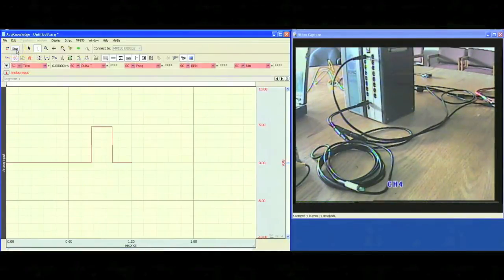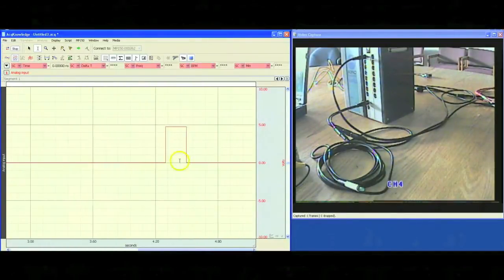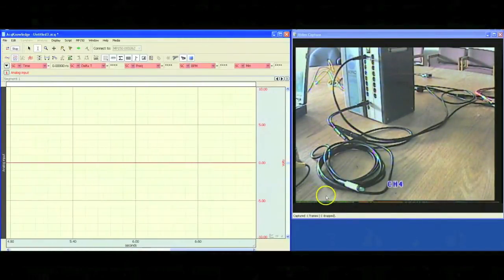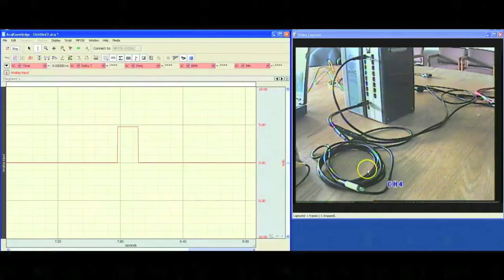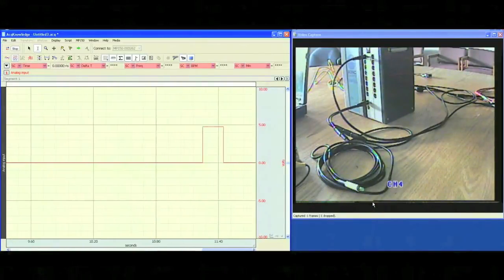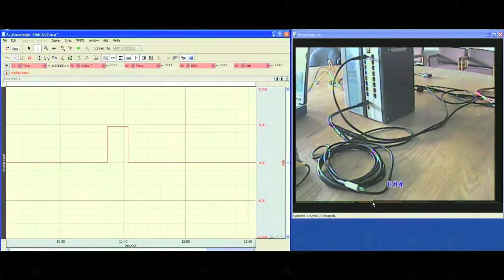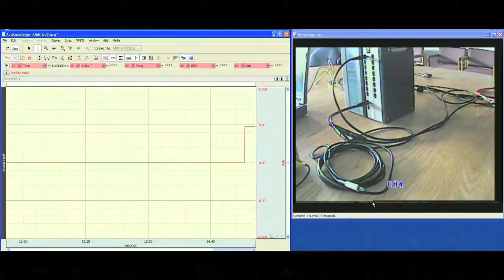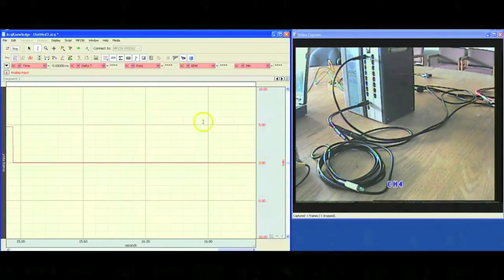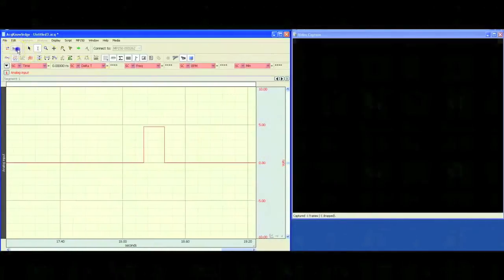When we click on start, you'll see the pulse is being output over here on the left-hand side, and on the right-hand side, you'll see the LED light flashing. We'll record a few pulses to make sure that we've captured enough to get a good offset reading. Once we've recorded some pulses, we can click on stop.